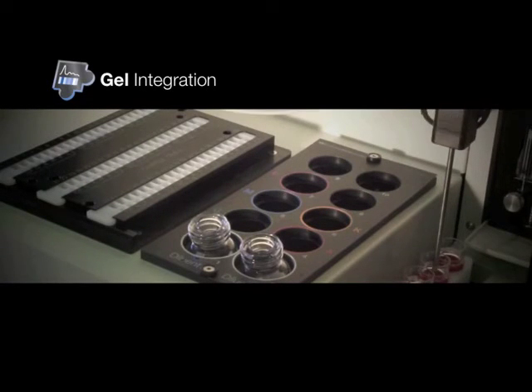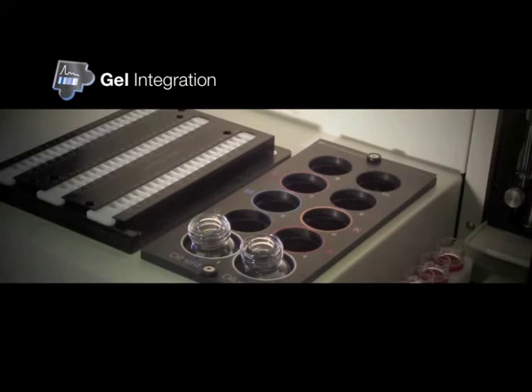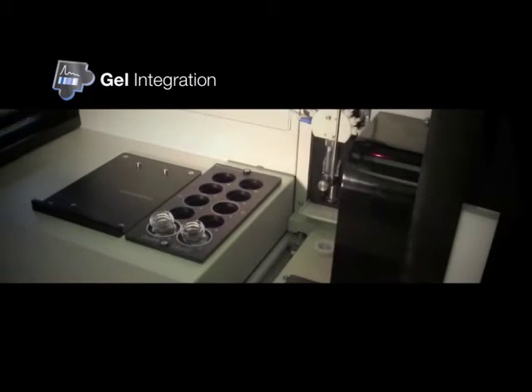Utilizing the unique XYZ arm, the V8 can be used as an automated sample handler for off-board analysis, using Helena's gel assay range for confirmatory analysis and access to gold standard tests.